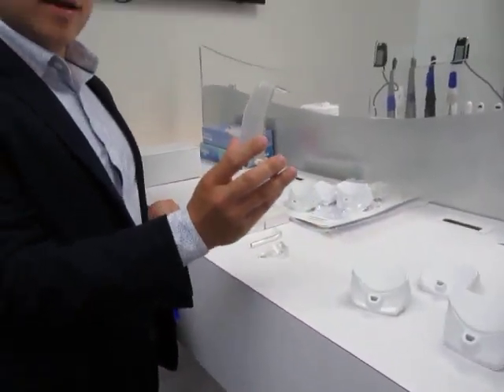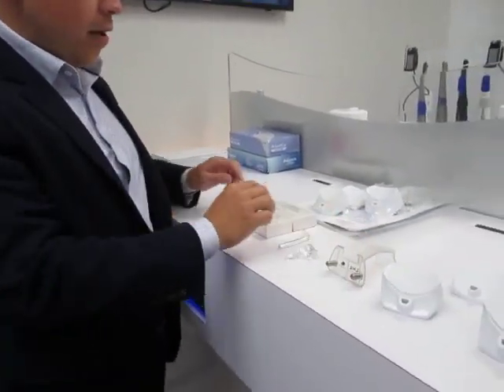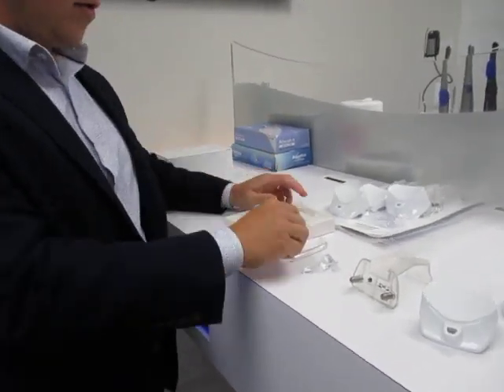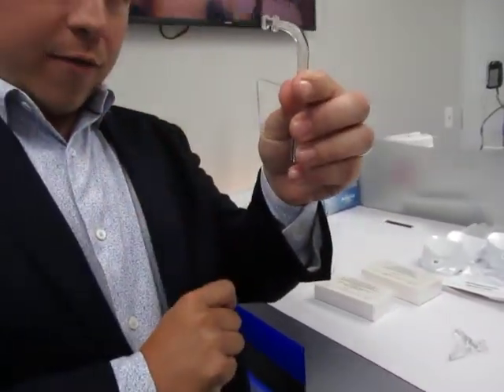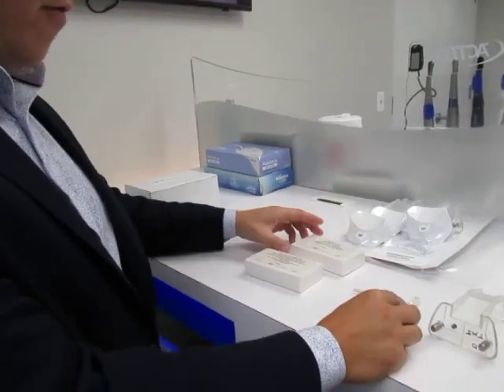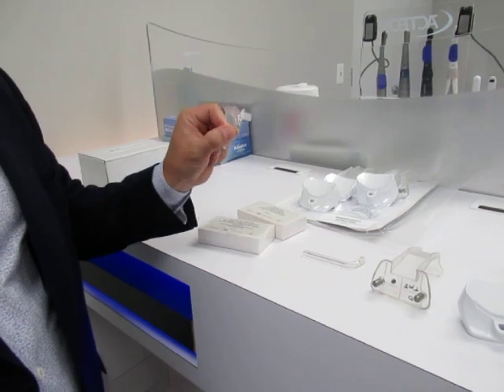You have your 2D TMJ chin rest. This is going to go underneath the nose and you have bite stick covers for that — they're going to be called TMJ bite stick covers. You also have a normal bite stick, which has little notches for the teeth, and you have your edentulous bite stick. You also have covers for that. The edentulous just gets wiped off. You cannot autoclave these.